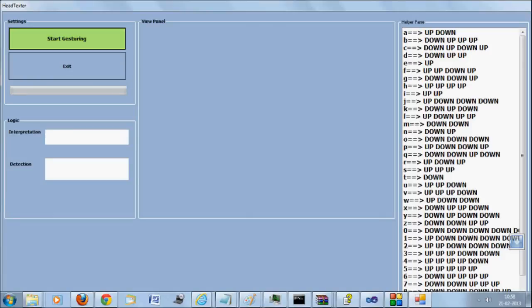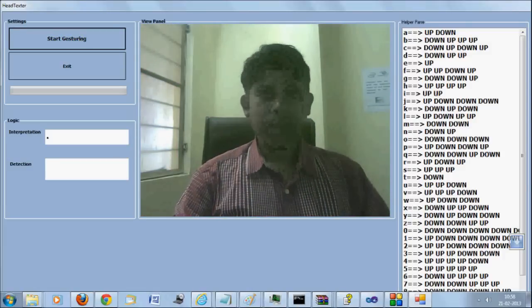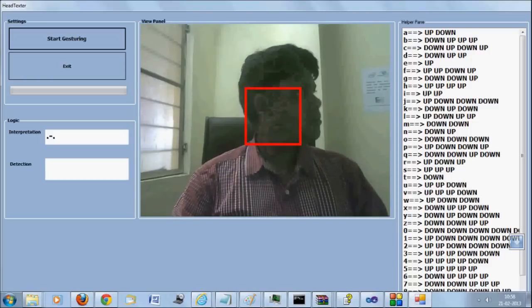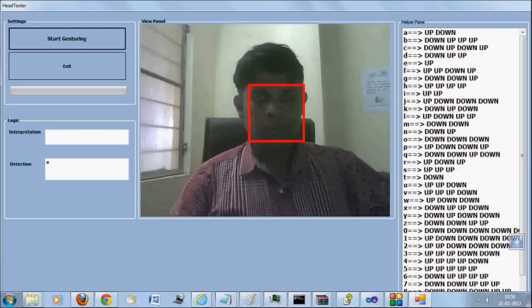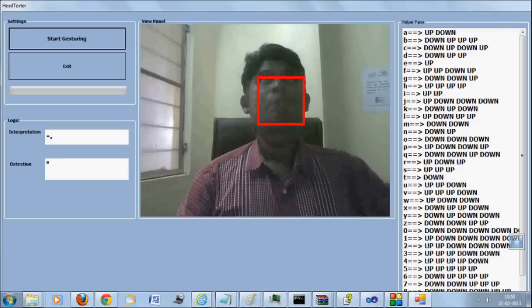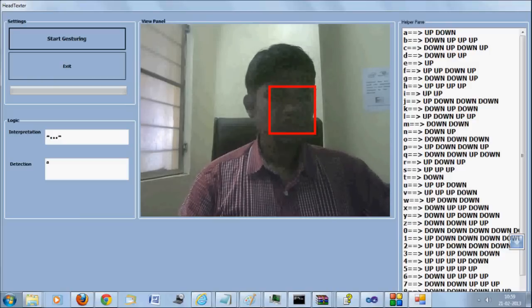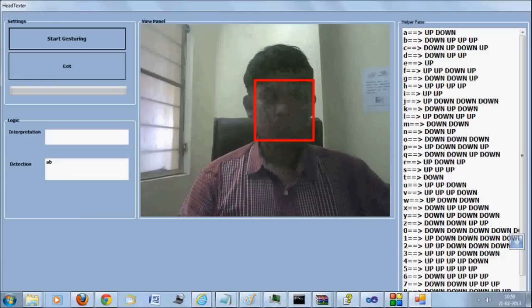Hello friends, welcome to the demonstration of Headtexter. This is a very critical software and a step towards helping out Alzheimer's disease patients. There are certain paralytic attacks which restrict the movement of body parts of human beings, and there are several thousands of such patients all over the world. When we saw the perceptual SDK for the first time, we thought let us do something for such patients.